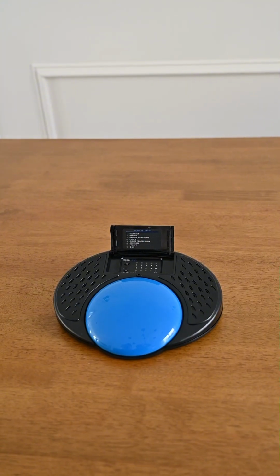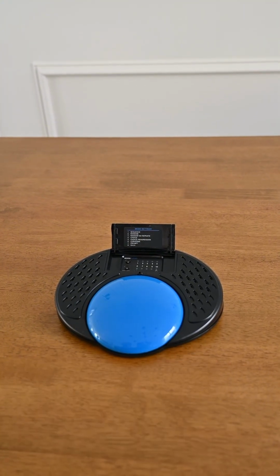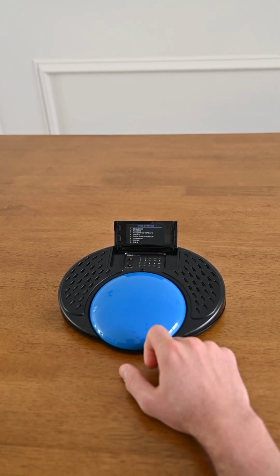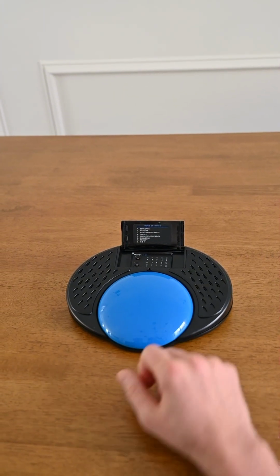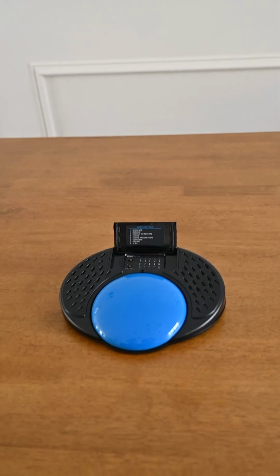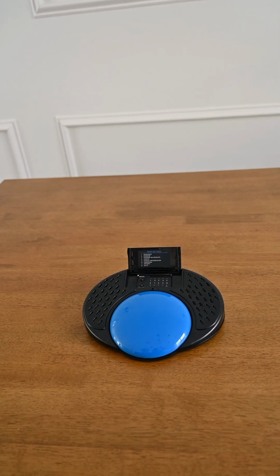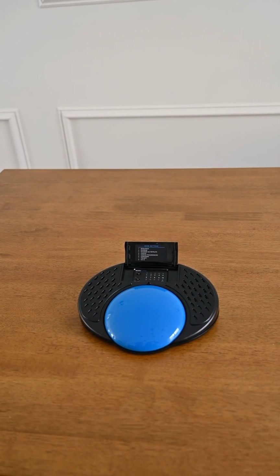So this is great for emulating a dice roll perhaps. 2, 6, 3, 6, 2, 4. Now you'll notice that we got 2 twice, we got 6 twice, so in random mode you can have the same message repeated. It doesn't have to be random no repeats. That is the next mode, which I'm going to show you now.